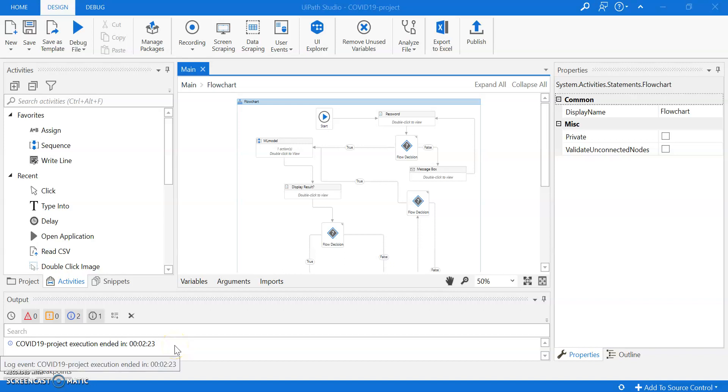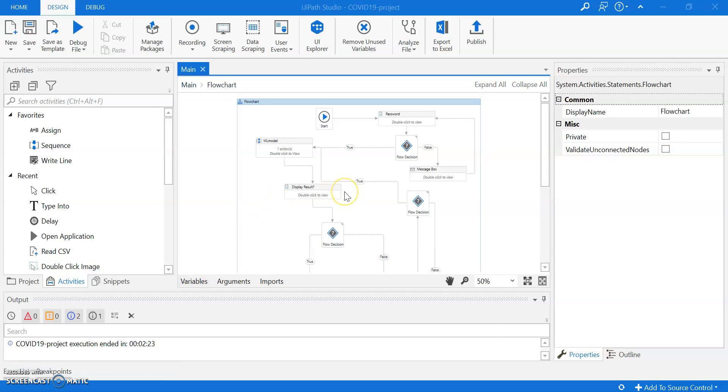Hello everyone, this is Vili. In the light of COVID-19 that infects hundreds of thousands of people worldwide, I built a UiPath framework that can detect whether a chest x-ray has signs of COVID-19, bacterial pneumonia, or the chest x-ray is normal.